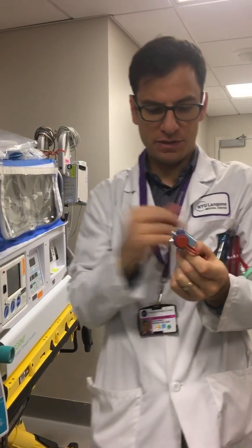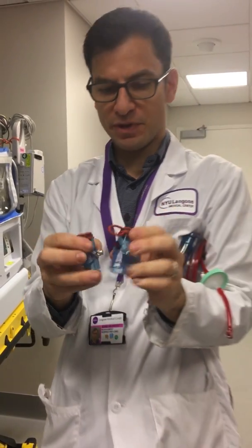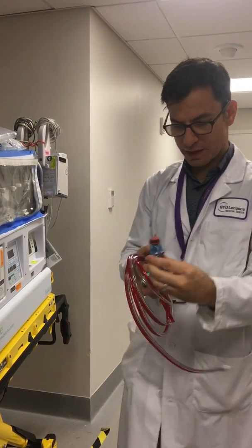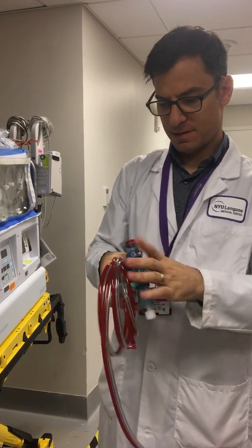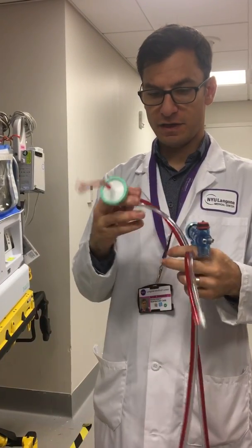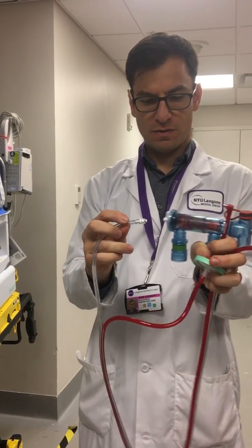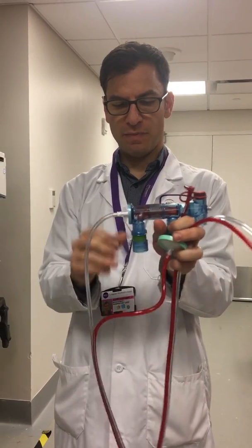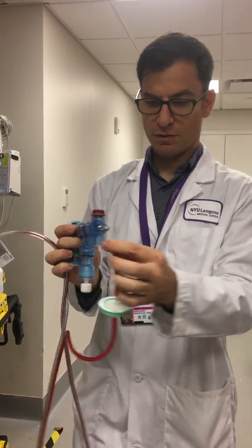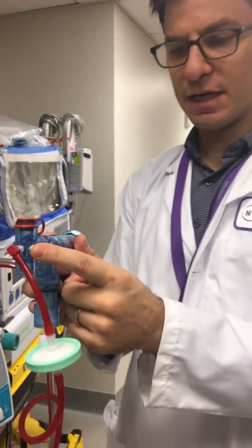The difference between these two: this has an extra port so that we can do nitric oxide sampling. So we use the extra port head. We connect it to the circuit and, as we know from previous videos, we connect the driving pressure clear line through the back here and our red pressure gauge right here in the center. And this offset will be for the nitric oxide sampling.